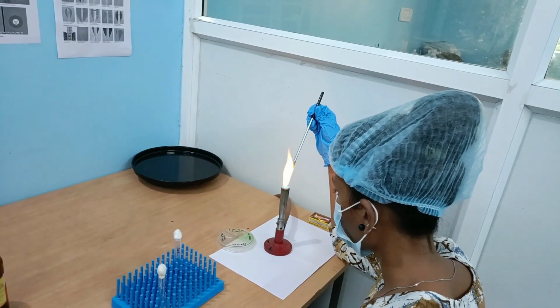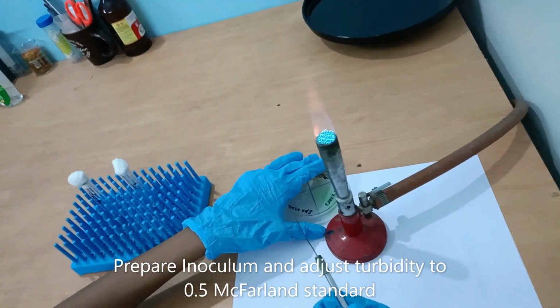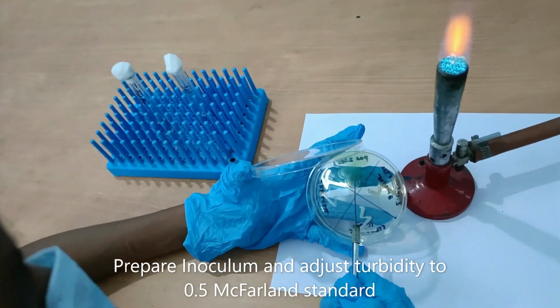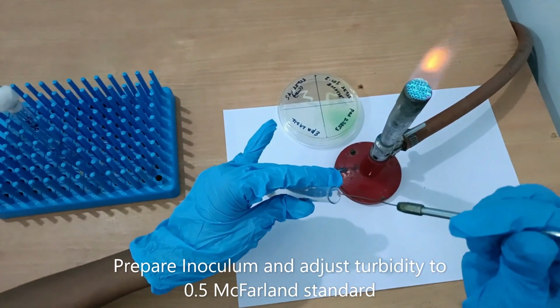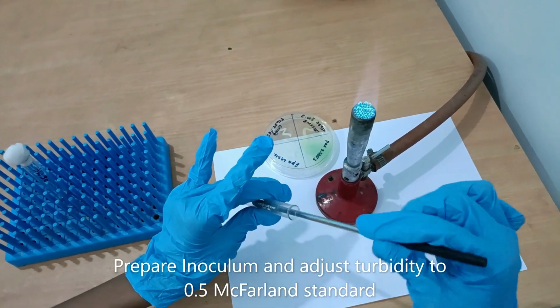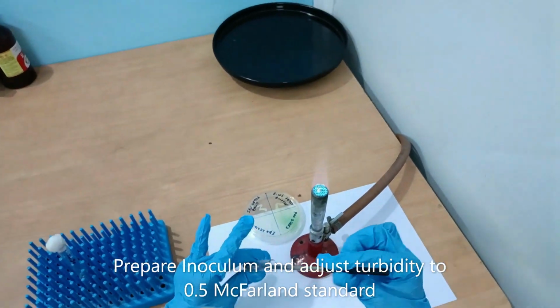Let's begin the procedure. First, sterilize the inoculation loop by holding it in a flame until it becomes red hot and allow it to cool for a few seconds. Then, pick pure colonies from a culture plate, preferably from a nutrient agar or blood agar, and suspend them in sterile saline or nutrient broth to prepare a bacterial inoculum.